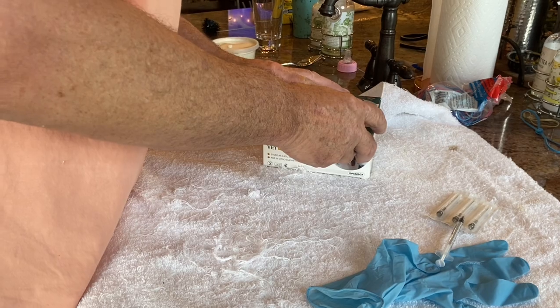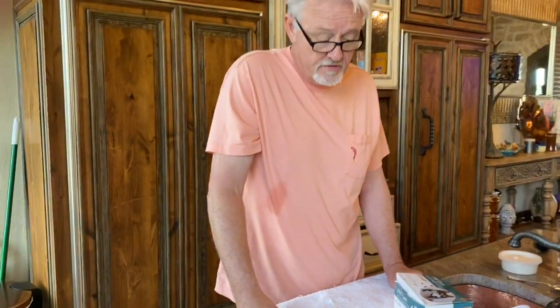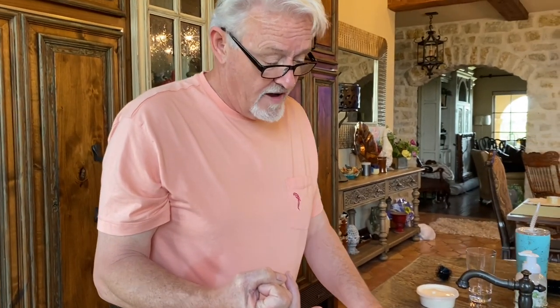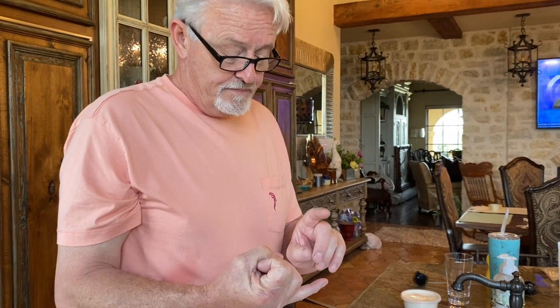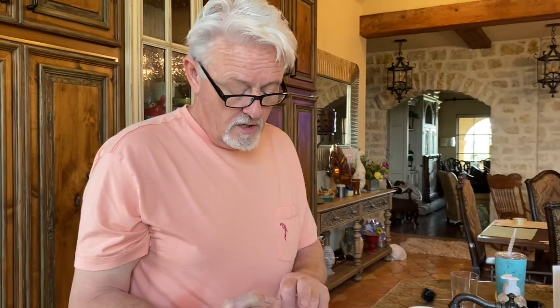If you've got dogs that you're having problems with puppies, Giardia is something that's fairly hard to diagnose with a vet. It's much easier to go get a snap test like this and have these on hand. And it's cheaper — a lot cheaper — with no vet visit either, and you get results within five minutes. You don't take your dog down to the vet's office to potentially pick up something else. The pregnancy test you do 30 days after AI for reliable results.